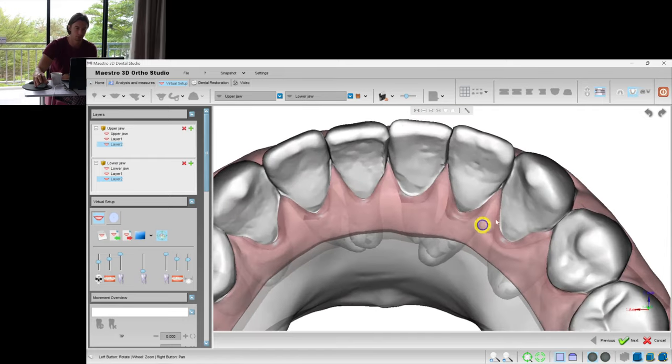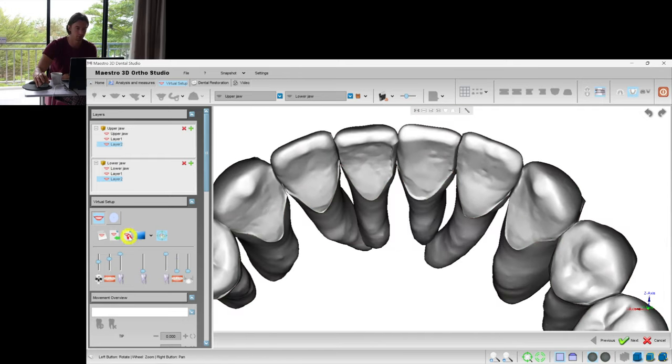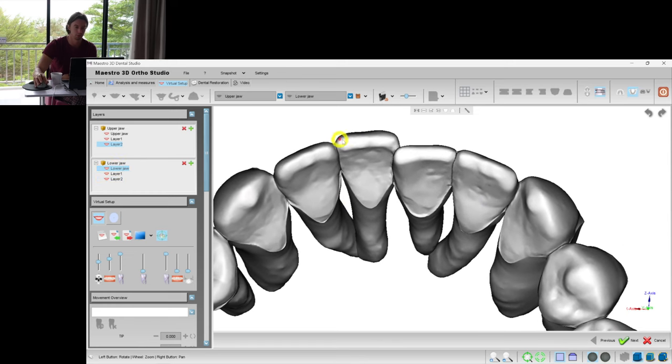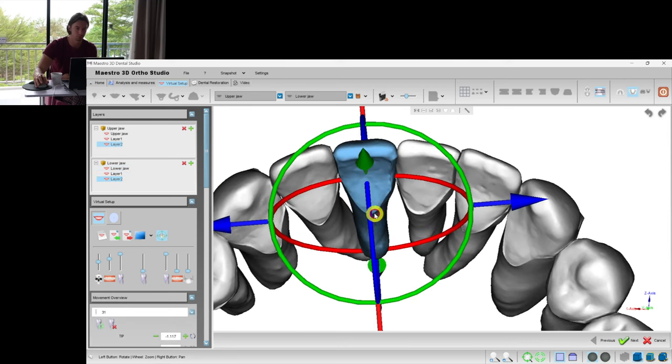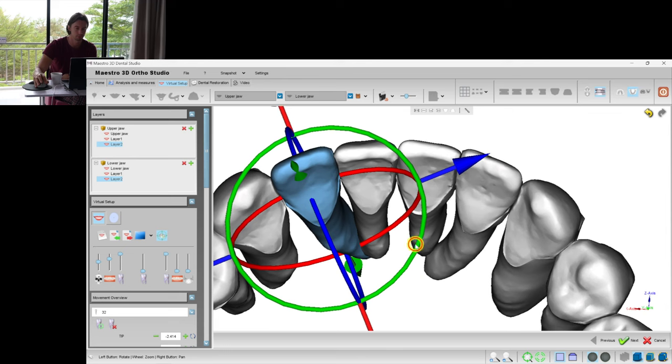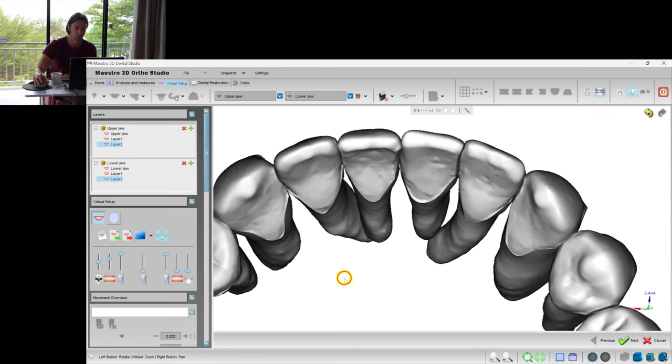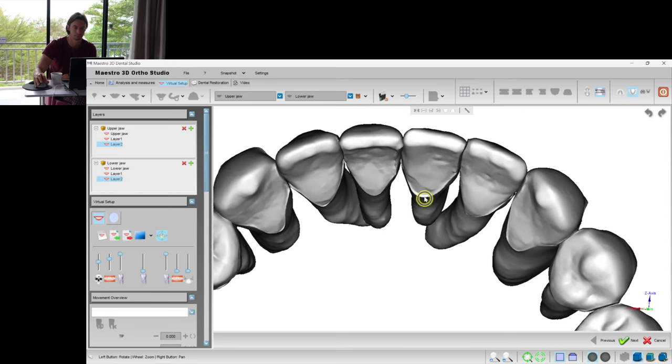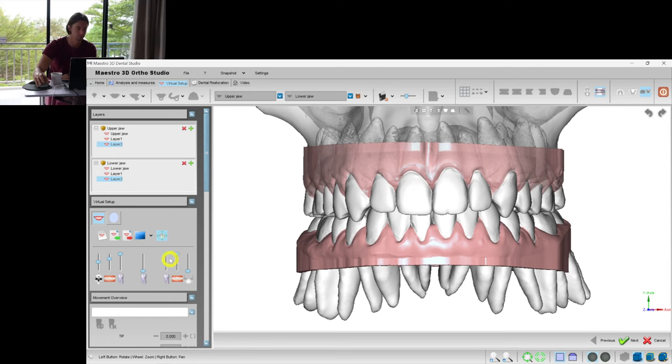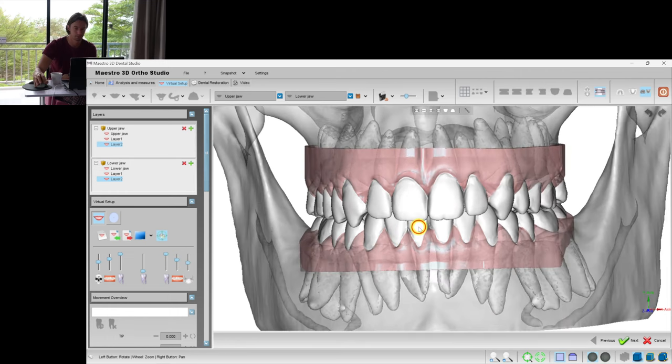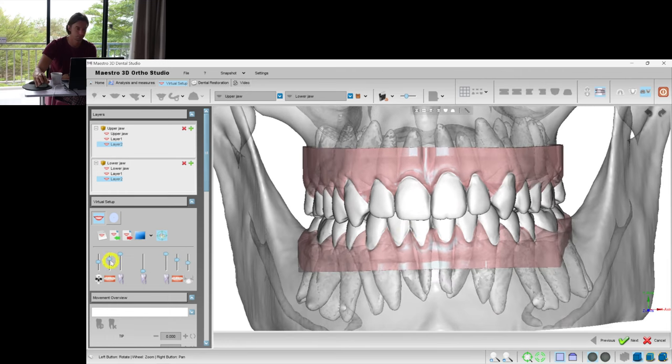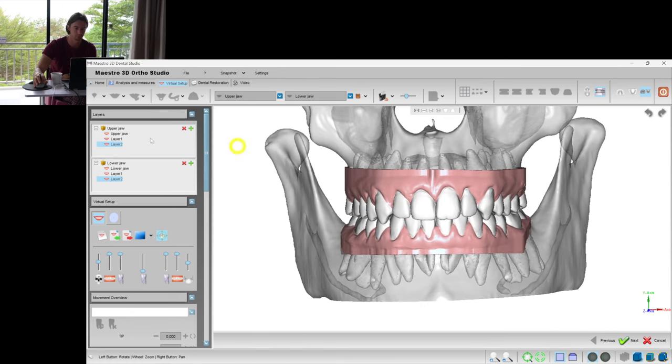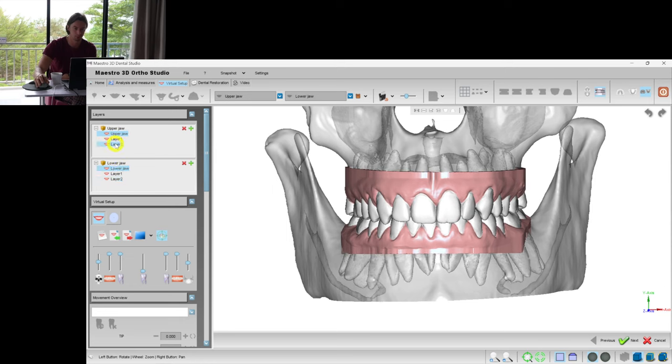I see that this incisor was a bit forward, so I need to put it a bit backwards. And same for the rest of the teeth. I always set some overcorrection for all the cases. Let's check the overcorrection on the lower incisors and the canines. We had this central incisor a bit forward, we should put it a bit more lingually.